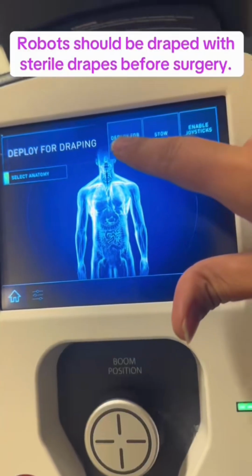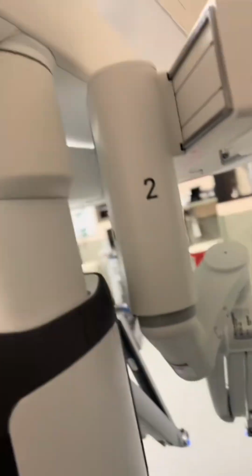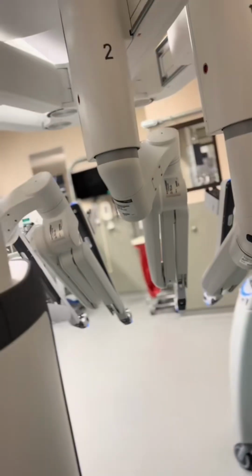Likewise, if we click on deploy for draping, the robot will adjust its boom and arms so that we can drape the robot with sterile drapes.